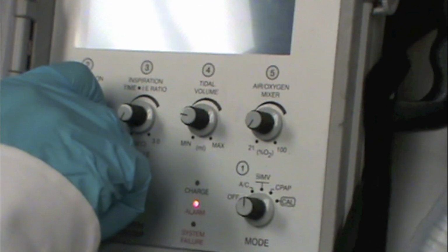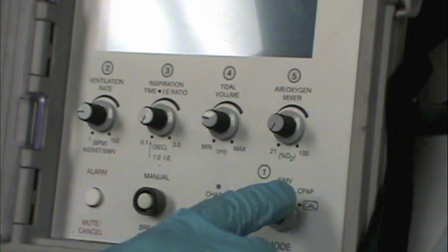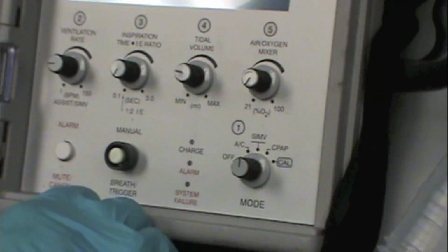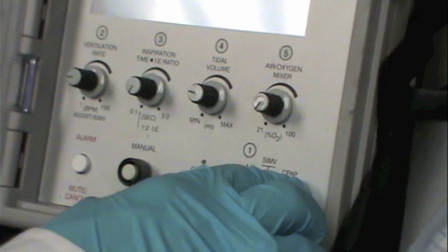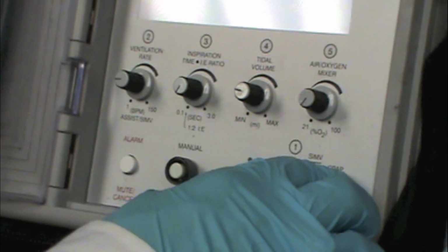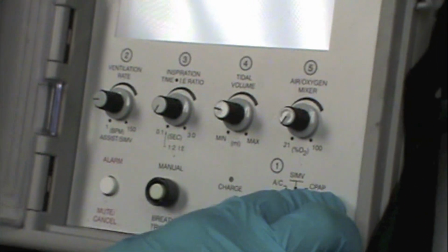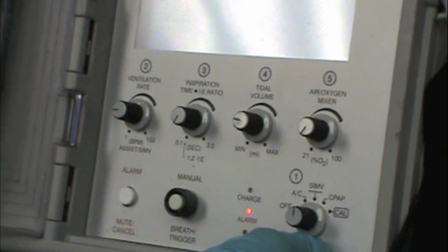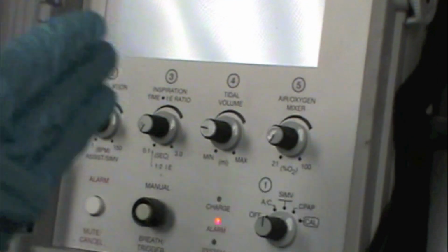So in order to use this mode of CPAP, the patient has to be intubated. They can't have a BiPAP mask on or something like that. They have to be intubated, and this allows the patient to breathe with some support from the ventilator. We can even set a rate if we so desire, but this is not a substitute for non-invasive positive pressure ventilation. So for the most part, in the transport setting, we're not going to have patients sitting in CPAP. We're usually going to have them in SIMV at a minimum, and we'll have them on a rate so that we can make sure they're ventilating adequately.